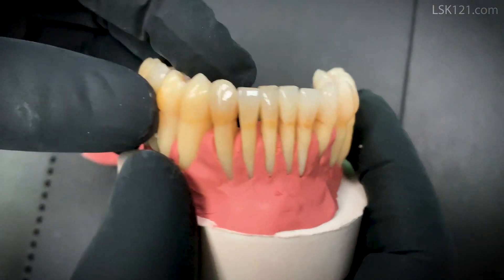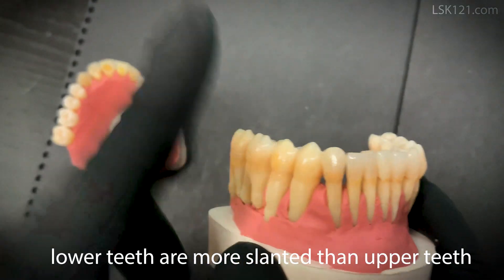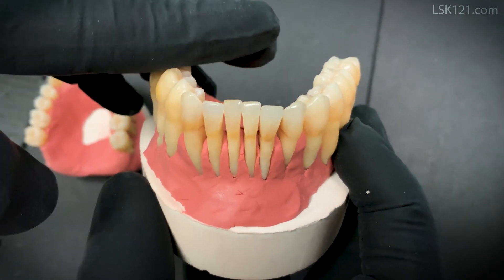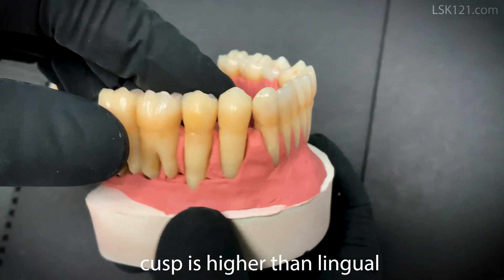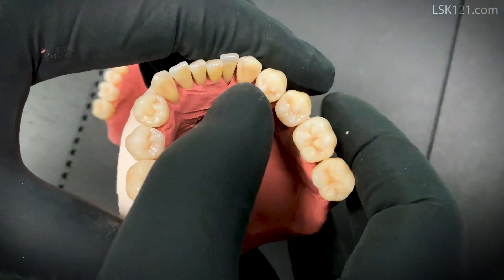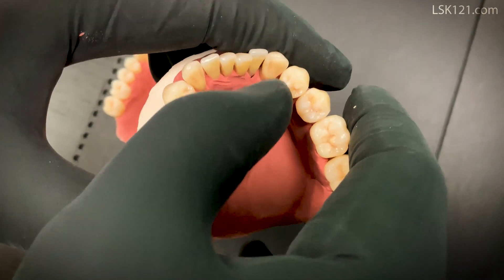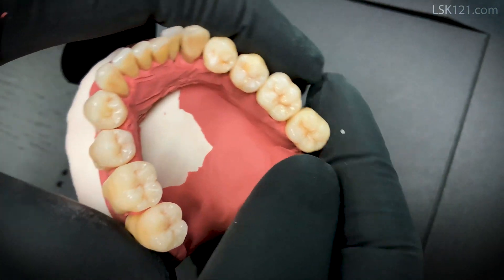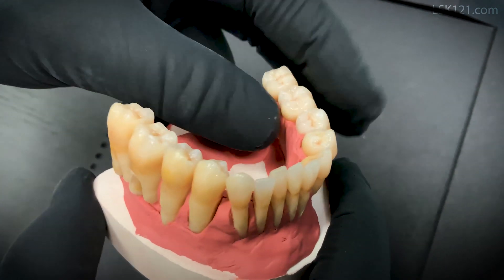The lower tooth is more slanted — that's the direction God created the root, not straight — so the cusp is higher than the lingual; that's the guidance. So we make the cusp touch the upper when fabricating a full mouth. The design goes from the canine with a small cusp, to no cusp, to two cusps in a more rectangular shape — it's almost the same on each half.